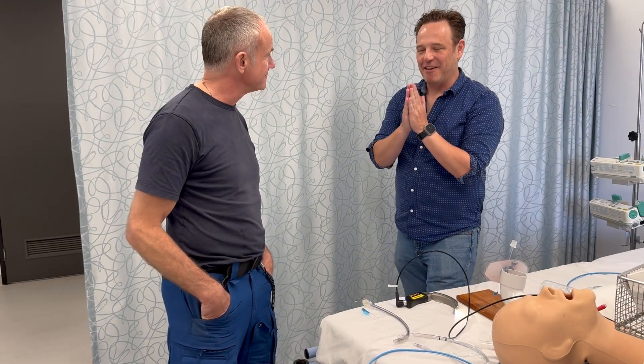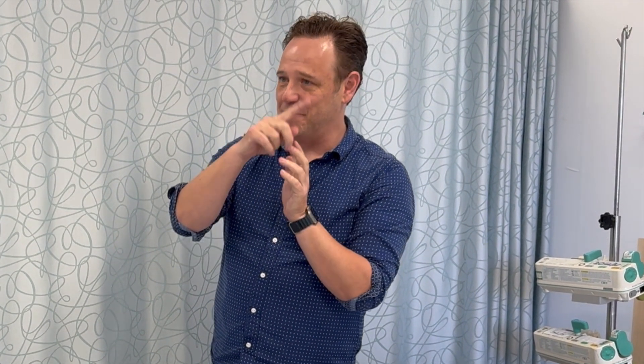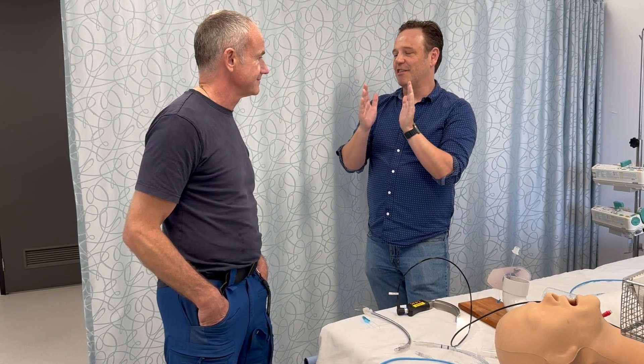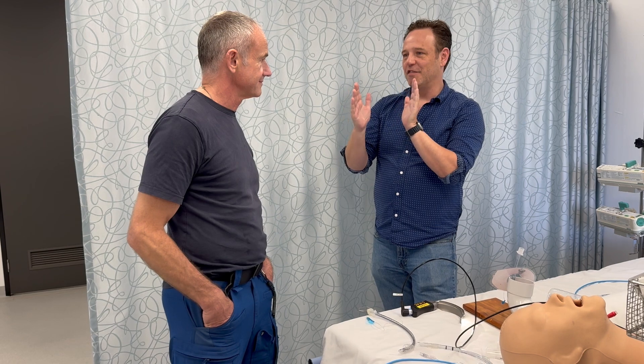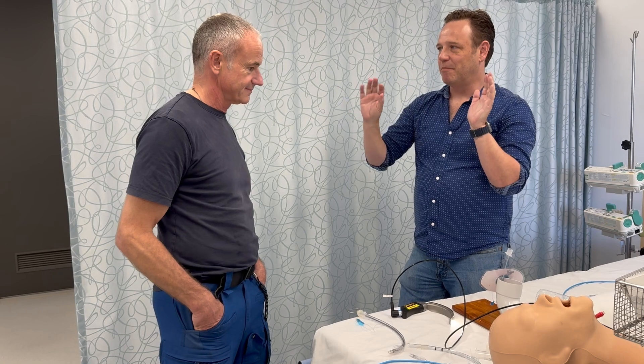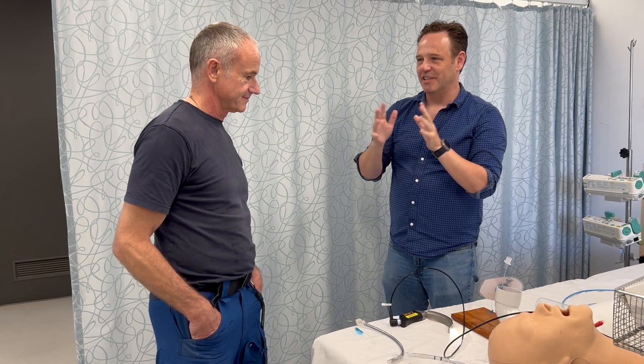When I think about laryngoscopy — whether it's direct, indirect, MAC, or hyperangulated — I think of it in terms of view, delivery, passage. If you think about Keith Greenland's primary-secondary curve, the primary curve when you're using a MAC blade is negotiated mechanically. You use the MAC blade to flatten out that curve. The result is, if you've got a view, if you've got line of sight, you've got line of passage. So all the skill is in getting a view, and after that, apart from some minor tweaks, usually delivering the tube is okay.